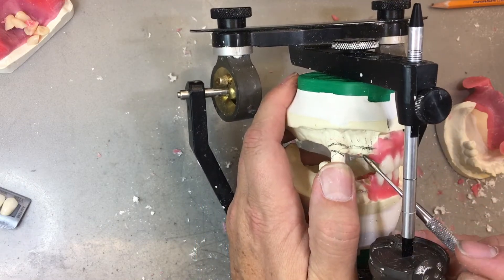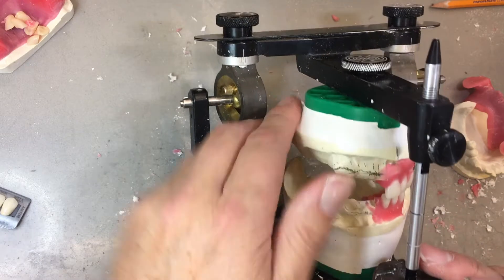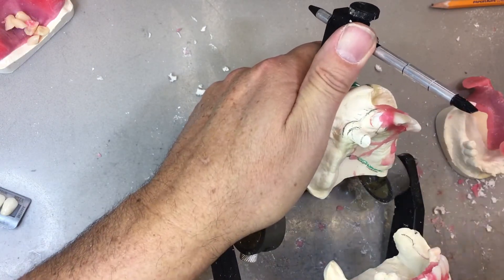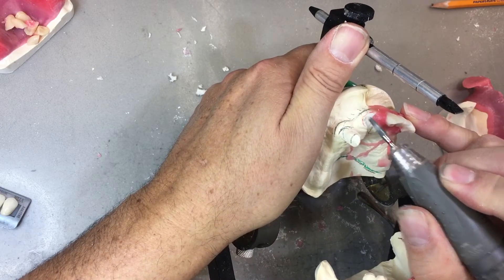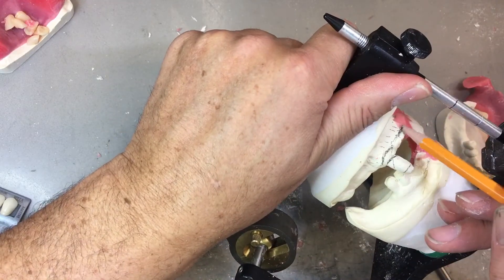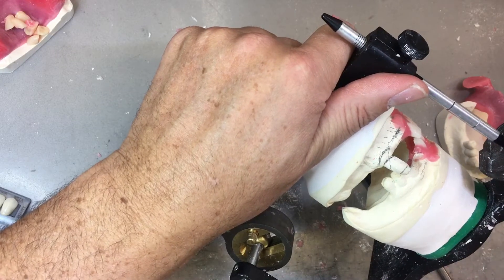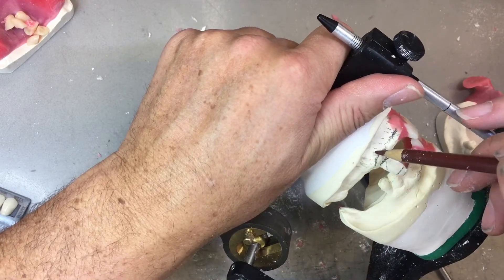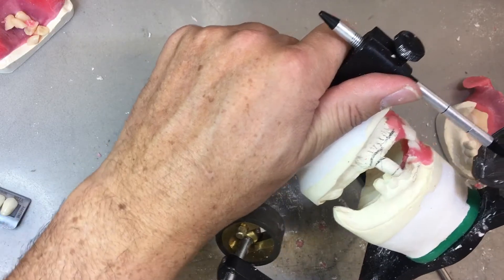What I'm going to do is continue and finish my anterior setup, then the lower anteriors, and then stop. I've taken out tooth number 1-1. You can see the red pencil I've used here to mark the gingival margin. Now, if you look where I've drawn a pencil line here, this is almost like the height of contour of the ridge if I was to use a surveyor. Because in a lot of immediate dentures there's a path of insertion. All these lines I've drawn here are undercut — do you see them? These are all undercut and will have to be relieved after processing.